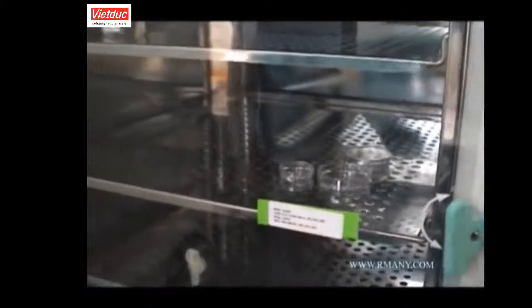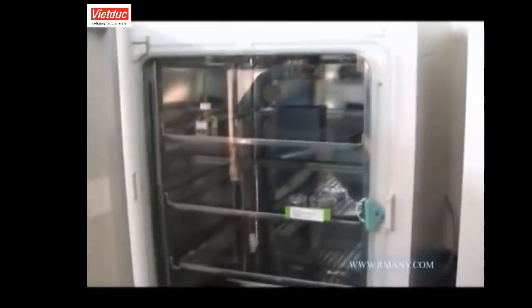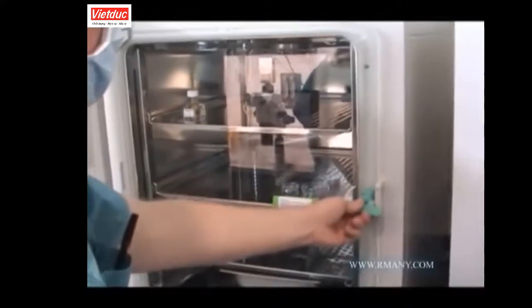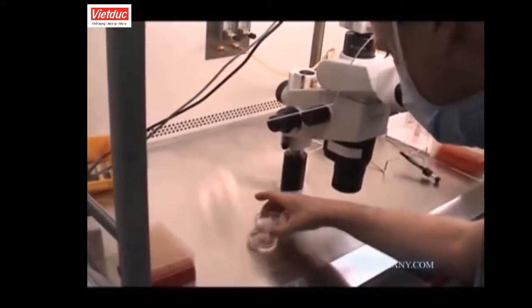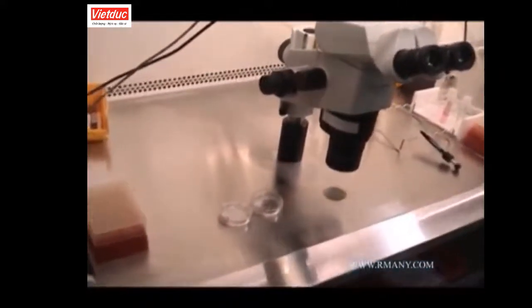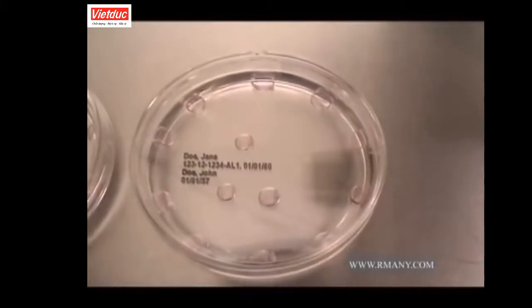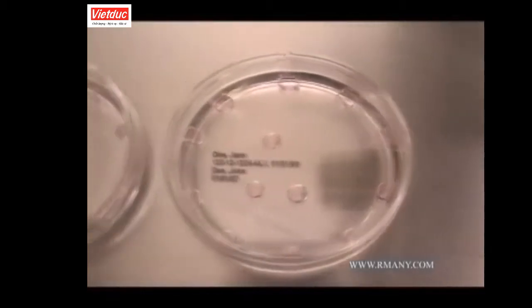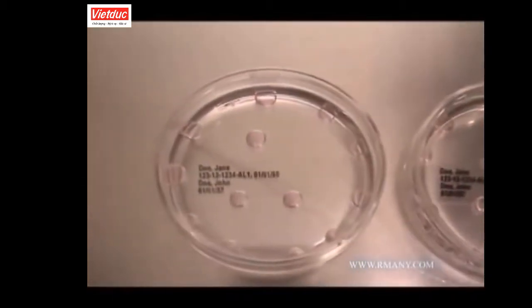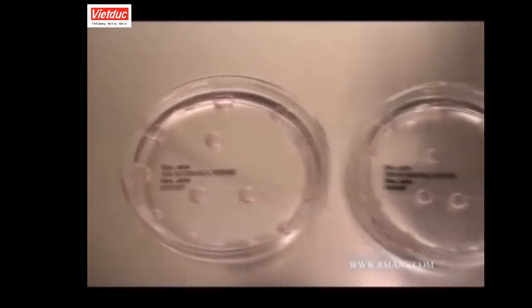In order to perform a procedure, your culture dishes must be carefully removed from the incubator. The dishes are identified and witnessed by 2 embryologists who verify that all unique identifiers match before proceeding with any procedure. You can see in the culture dishes shown here the individual drops of pinkish media in which your embryos are cultured, placed precisely around the dish. The culture media is highly specialized for each stage of embryo development.